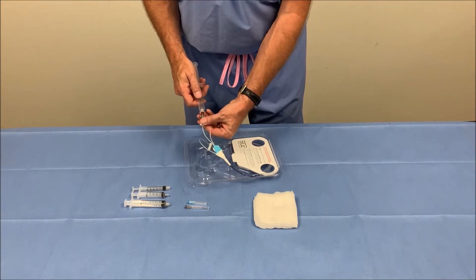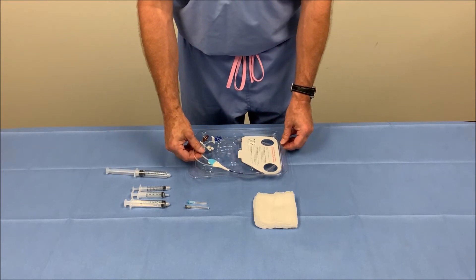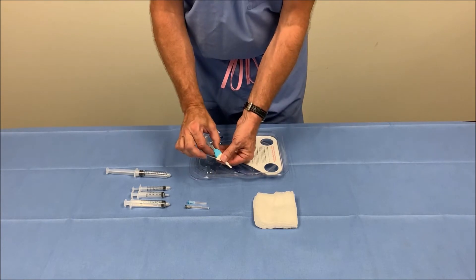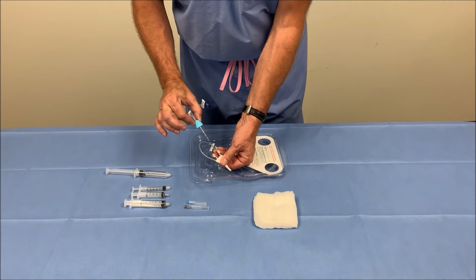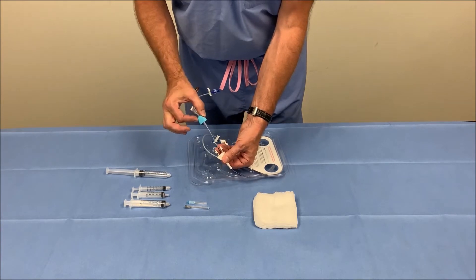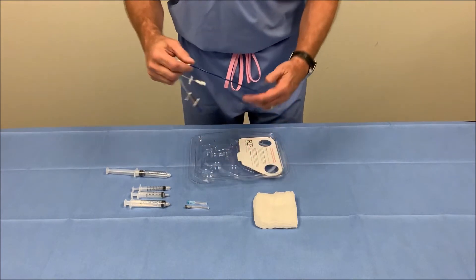Flushing the brown port, which is the guideway port — we'll leave that unclamped. Next, we need to remove the filter from the packaging. We want to do that by pushing down on the white tabs and retracting the teal portion of the catheter until we feel slight resistance and see the stop text. Now the filter is safely within the sheath and can be removed from the packaging.